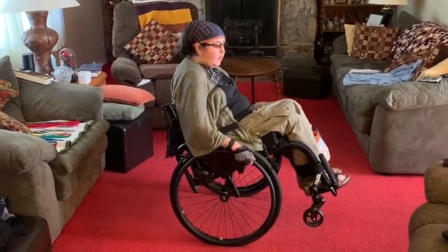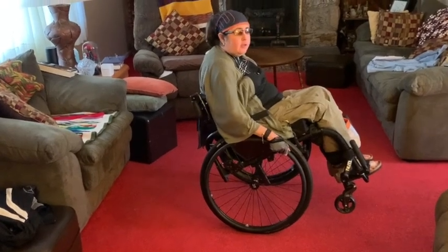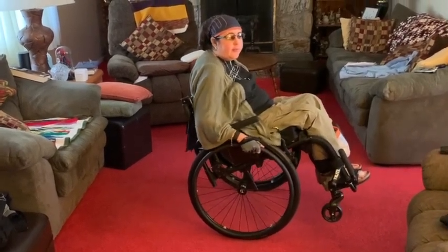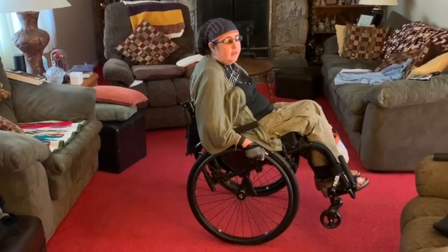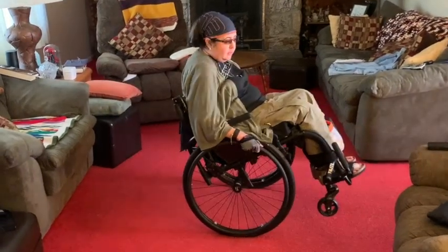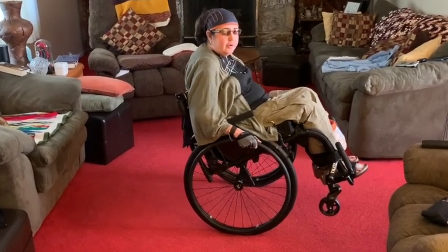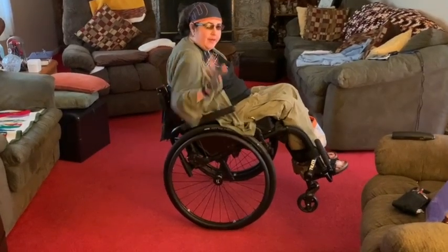If you start to move forward you move the wheels forward, and if you start to move backwards then you move the wheels backwards. Someone described it as if you're standing and you start to fall forward, you want to get your feet under your body — and in this case you want to make sure that your wheels are under your butt. I've been able to hold it for quite a while, which is pretty cool, and the next step is I want to learn how to turn during that. Thank you and I hope that helps.